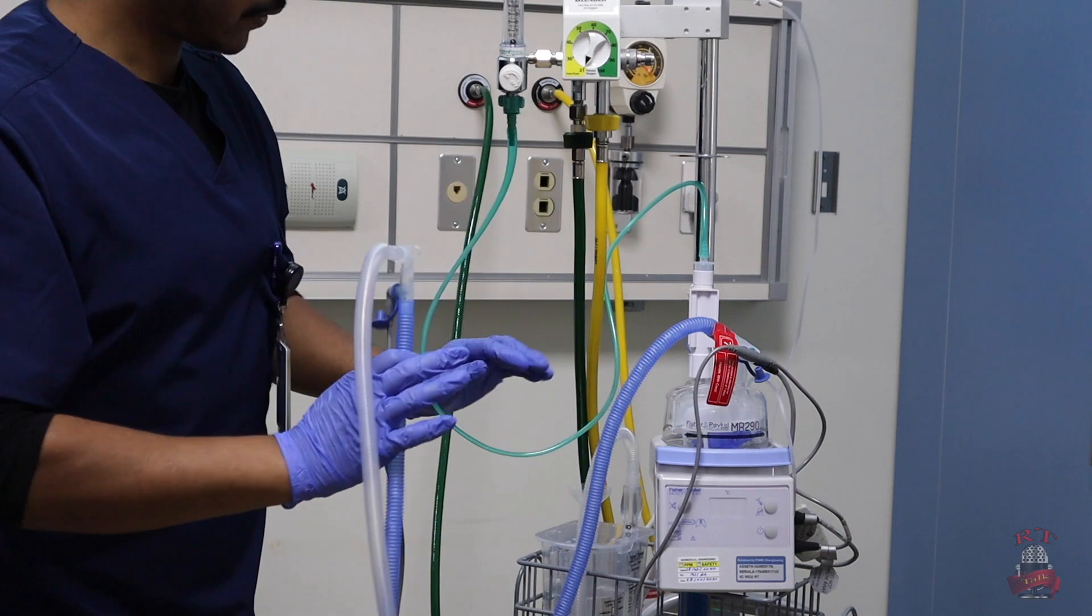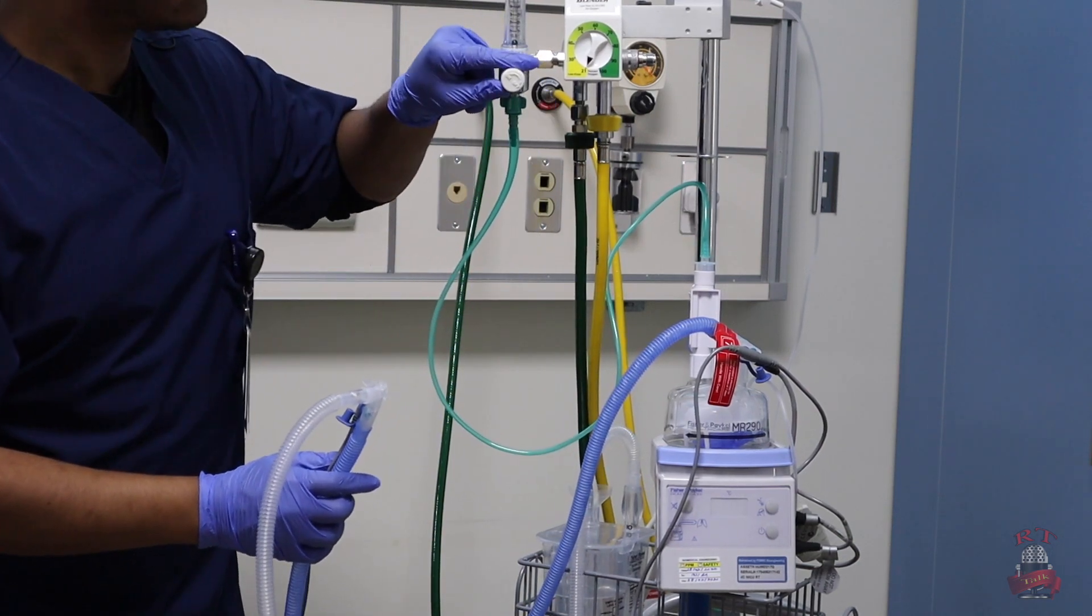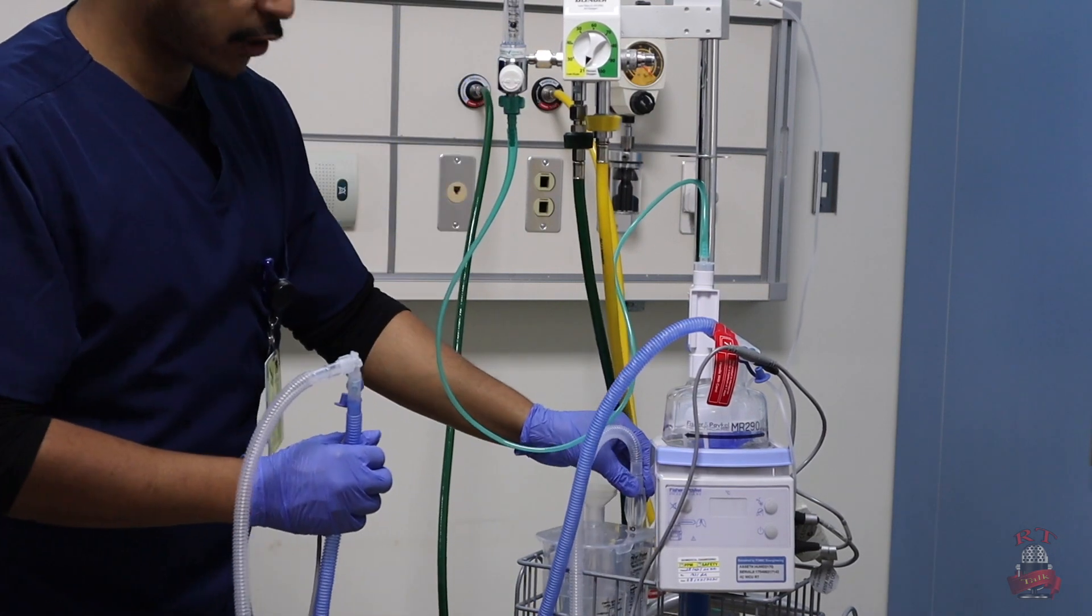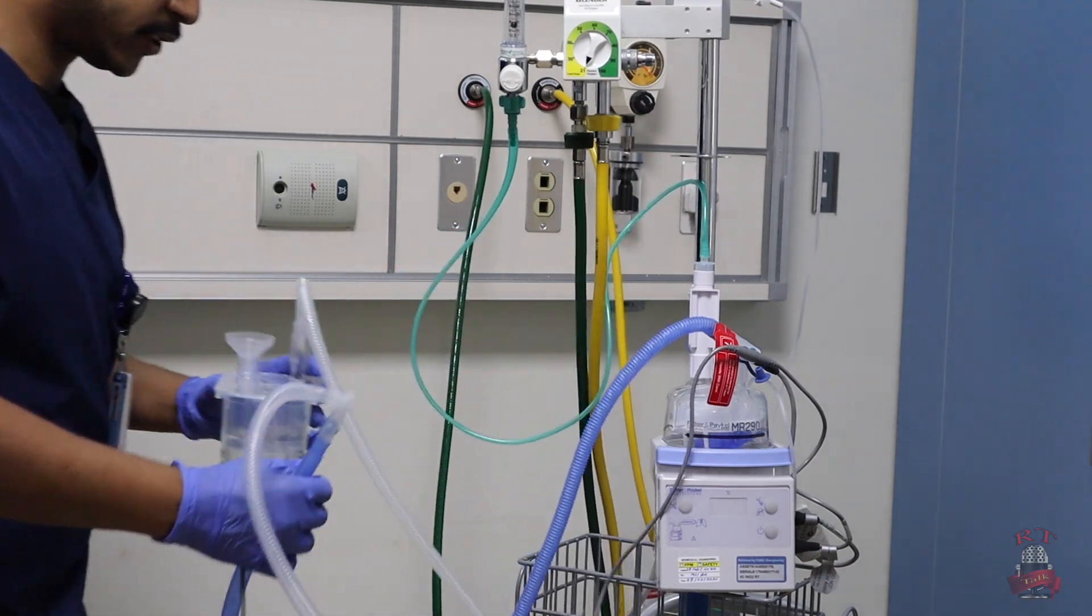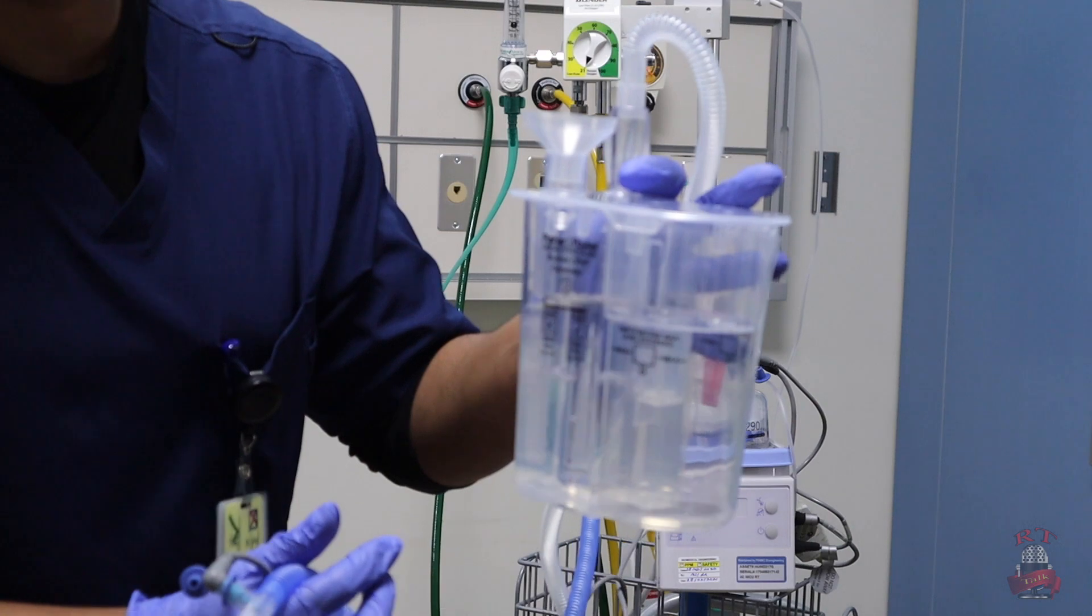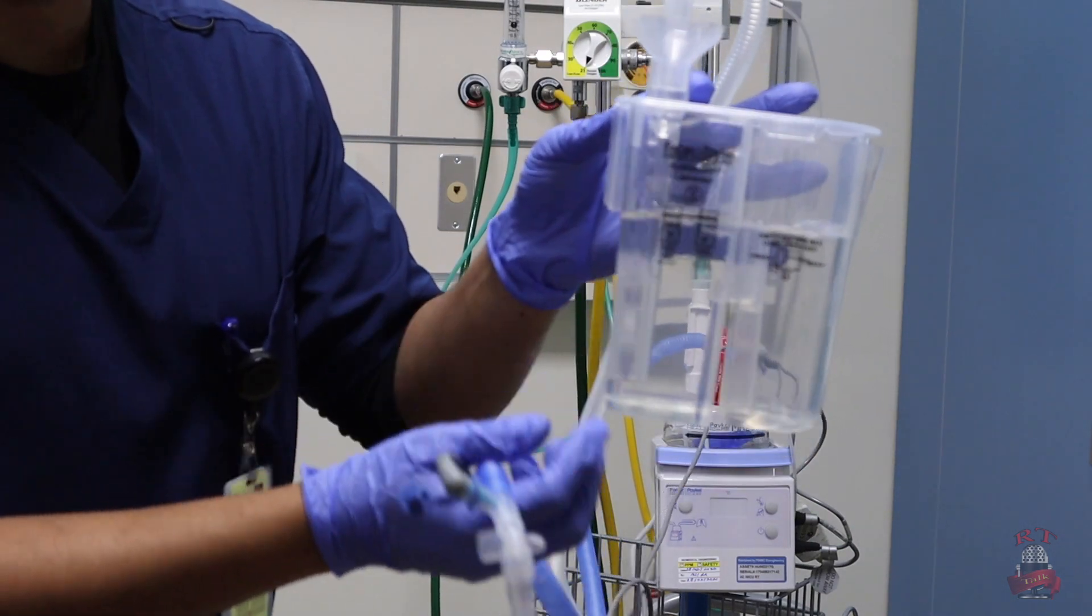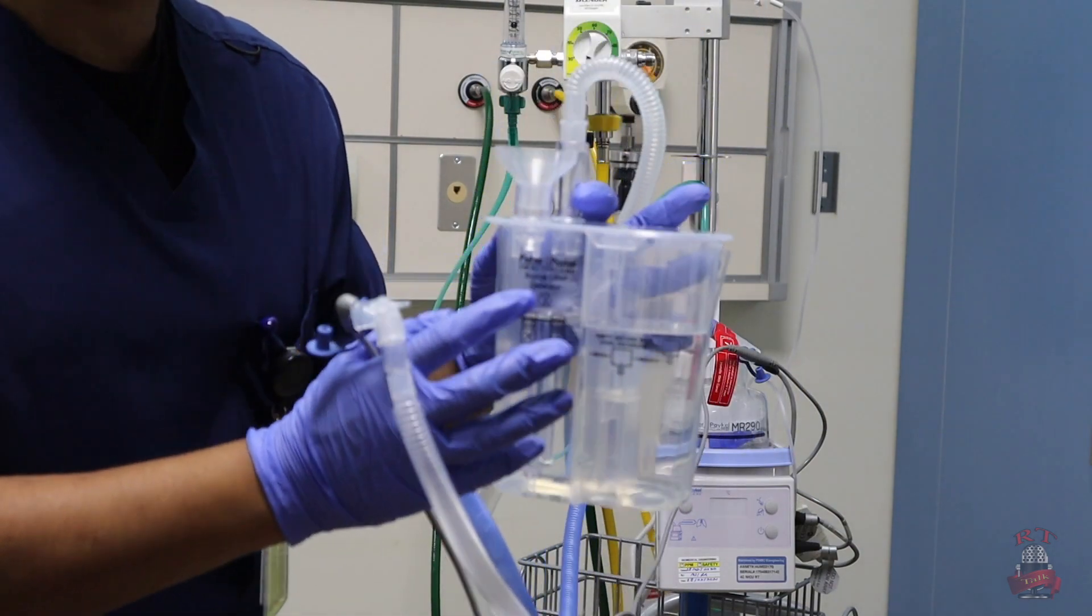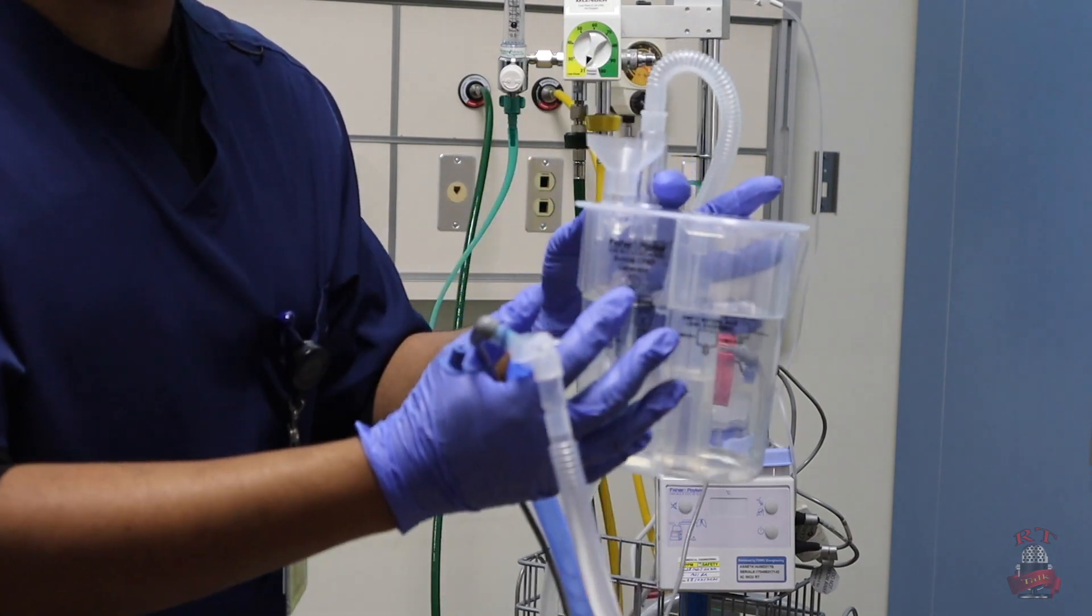Now, after I connect everything, I will put my flow at 2 and I will put my pressure at 10. And I will see if it's working or not. As we see right now, it's working properly. There is bubble and you can hear an audible sound. This is good. That means our system now is ready to connect it into the interface, then to the patient.